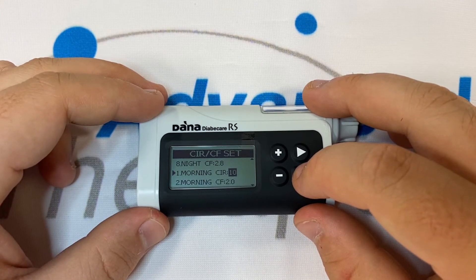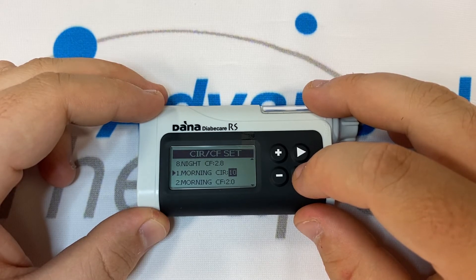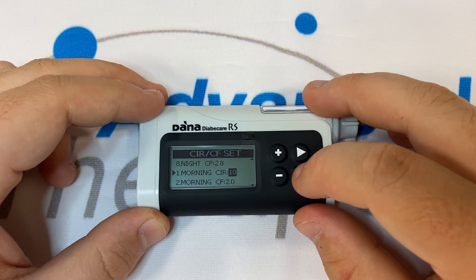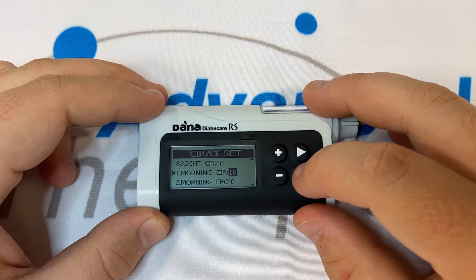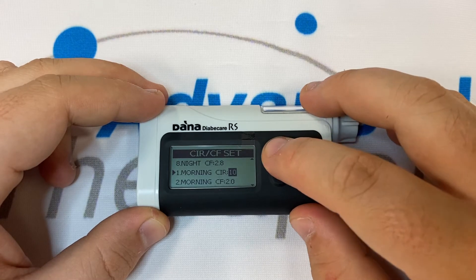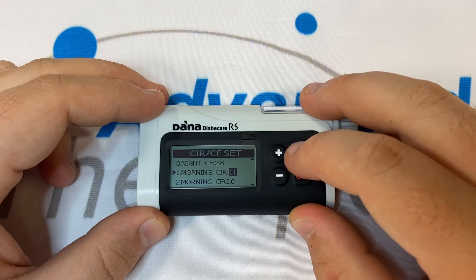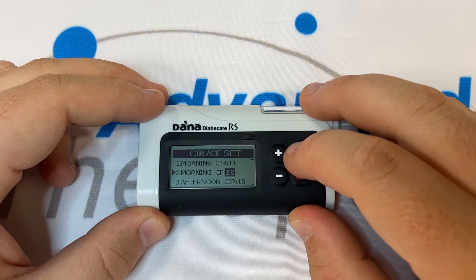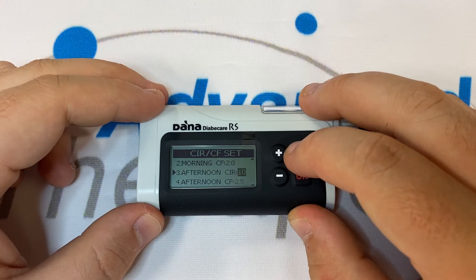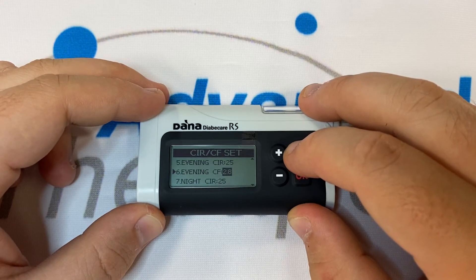In reality they are 6am till 11am, 11am till 5pm, 5pm to 11pm, and 11pm till 6am. Under Morning CIR we need to program in the number of grams one unit of insulin covers. Under Morning CF we program in the number of millimoles one unit covers. This needs to be done for each slot in the CIR/CF menu.